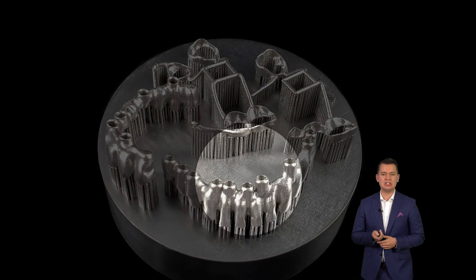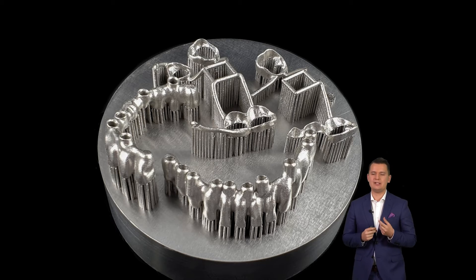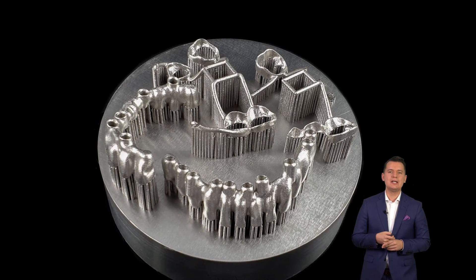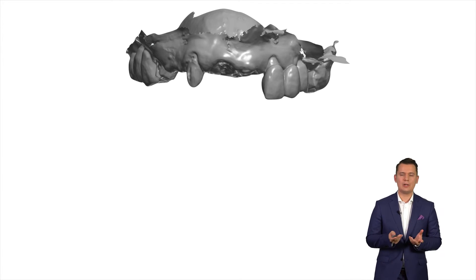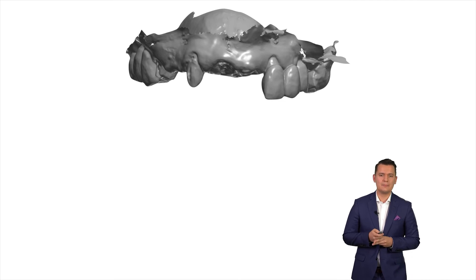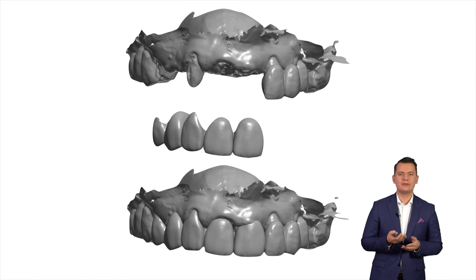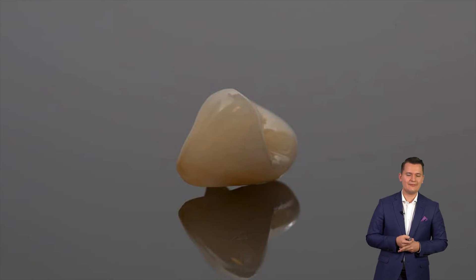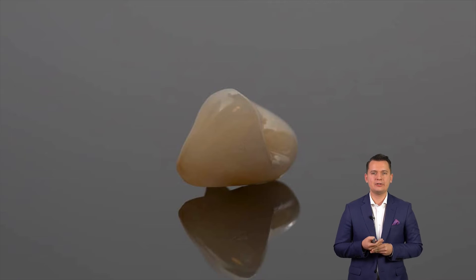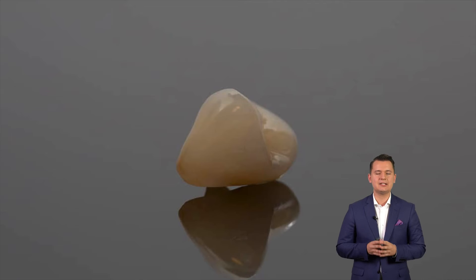Another thing in orthodontics — individual brackets. A great thing: it makes our life easier and treatment faster; it's more comfortable for the patient and the quality is amazing. We can laser-sinter our substructure based on implants as well. Another application is virtual wax-ups for our patients — in a few clicks and a few minutes we can create the digital wax-up and print the model or use it for further planning. Simple things like inlays can be made fully digitally without any models. For single units, full-contour zirconia can be made without a model.